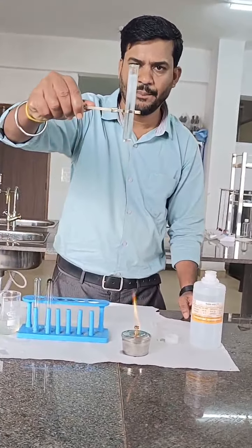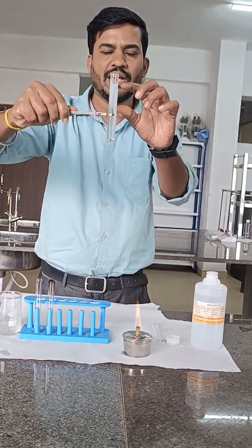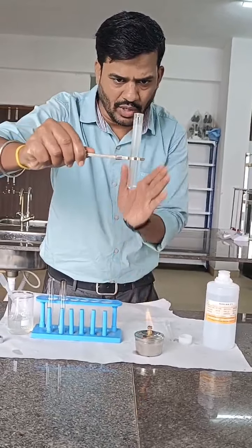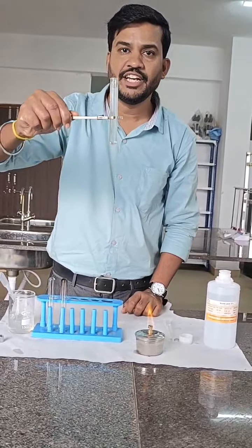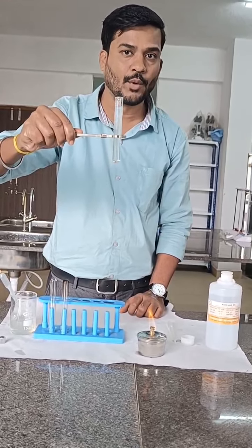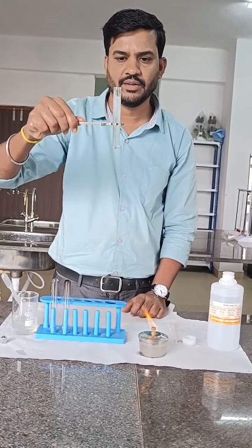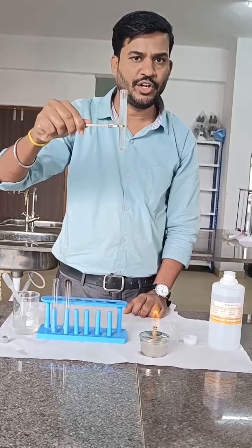The coagulum has appeared. This is the upper part — whatever we are heating, we have to compare it with the lower part. Now you can see the coagulation in the upper part. The coagulation may be either because of phosphate, carbonate, or protein. So we wanted to know whether the coagulation is because of phosphate, carbonate, or protein.